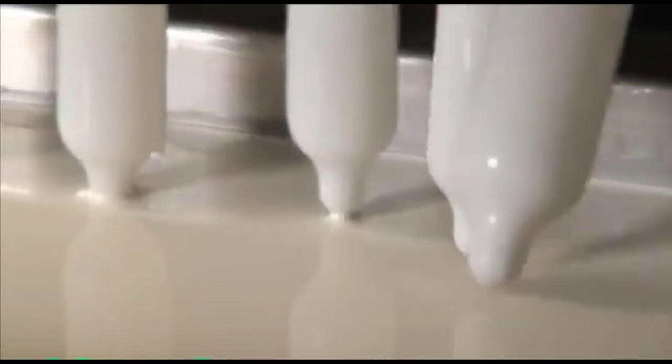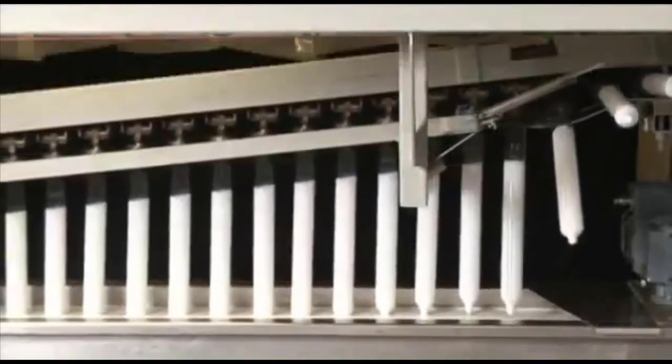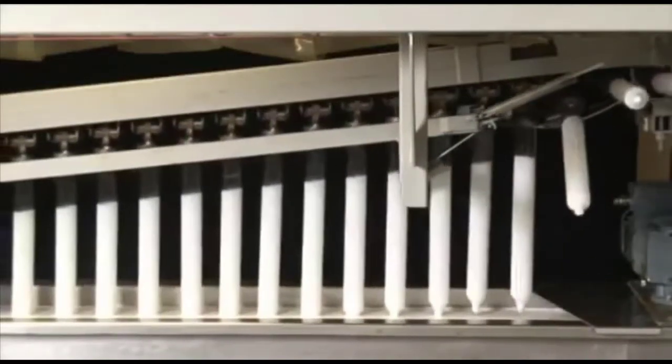They are slowly immersed into the latex mixture and equally carefully come out of the dipping tank again. In this step, it is important that the latex film gets an even and wafer thin strength.